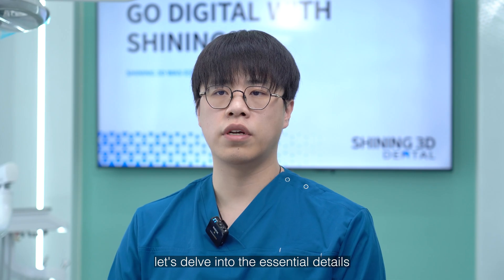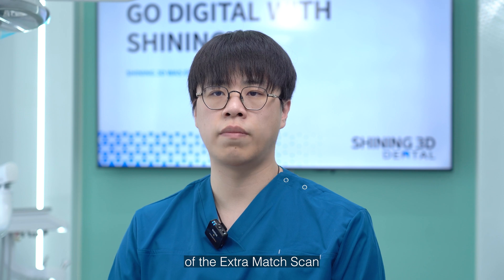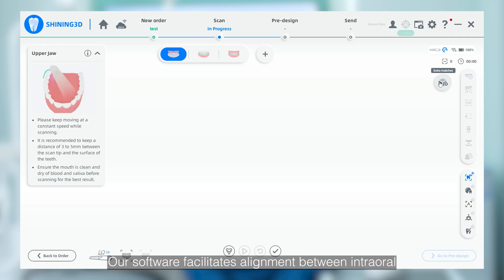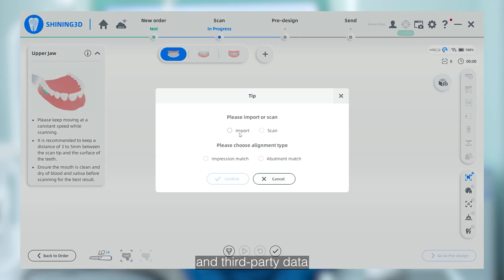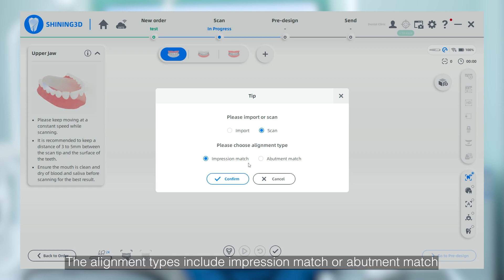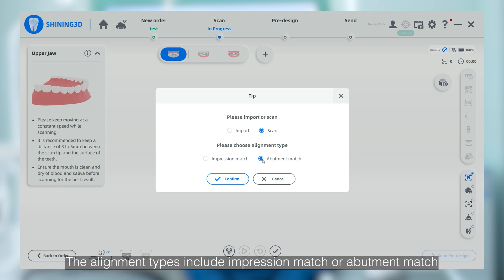Upon order creation, let's dive into the essential details of extra match scan. Our software facilitates alignment between intraoral and third-party data, whether imported or scanned. The alignment types include impression match or abutment match.